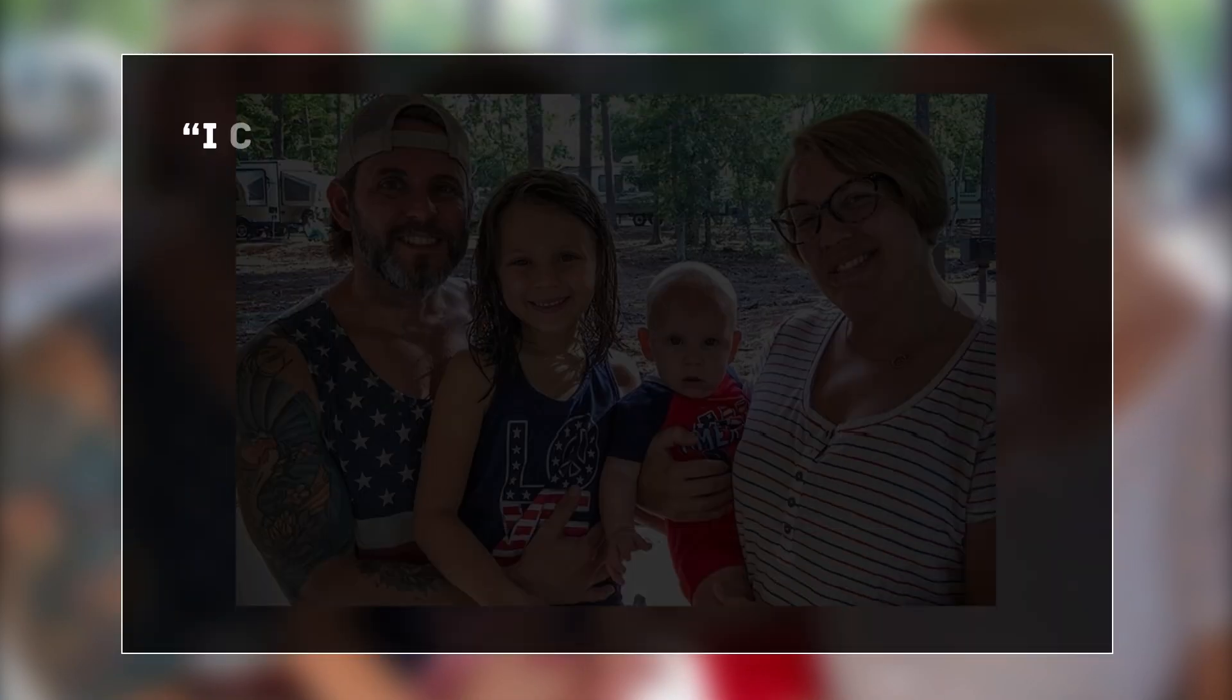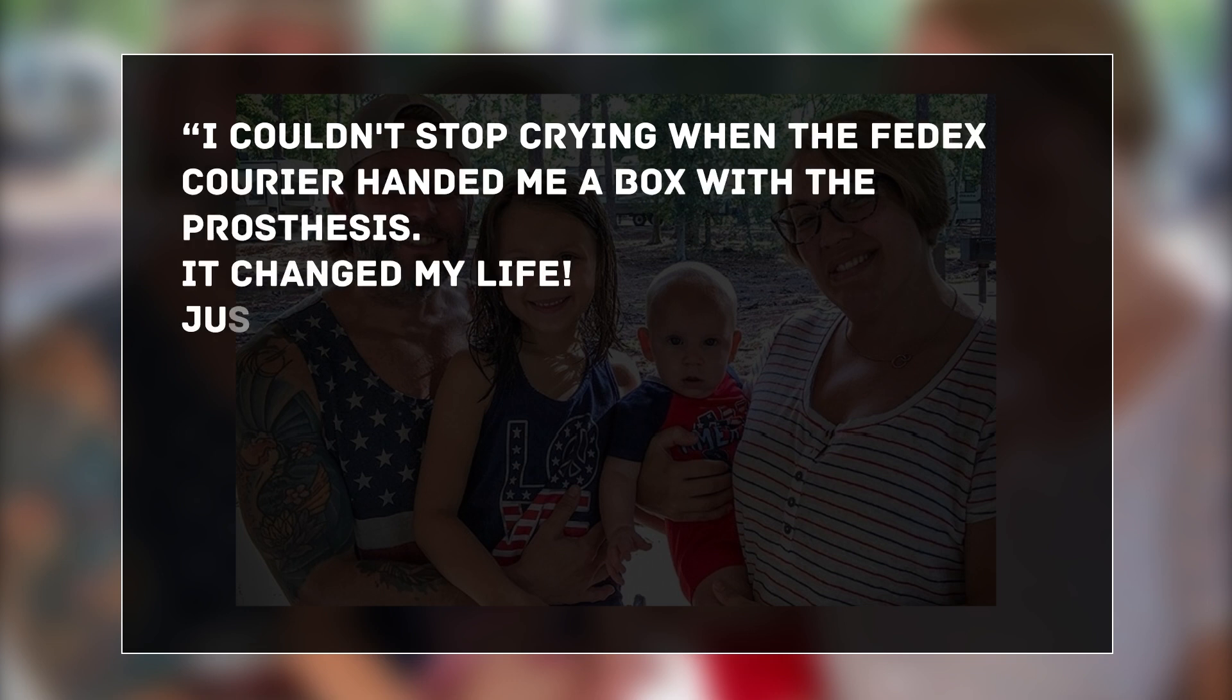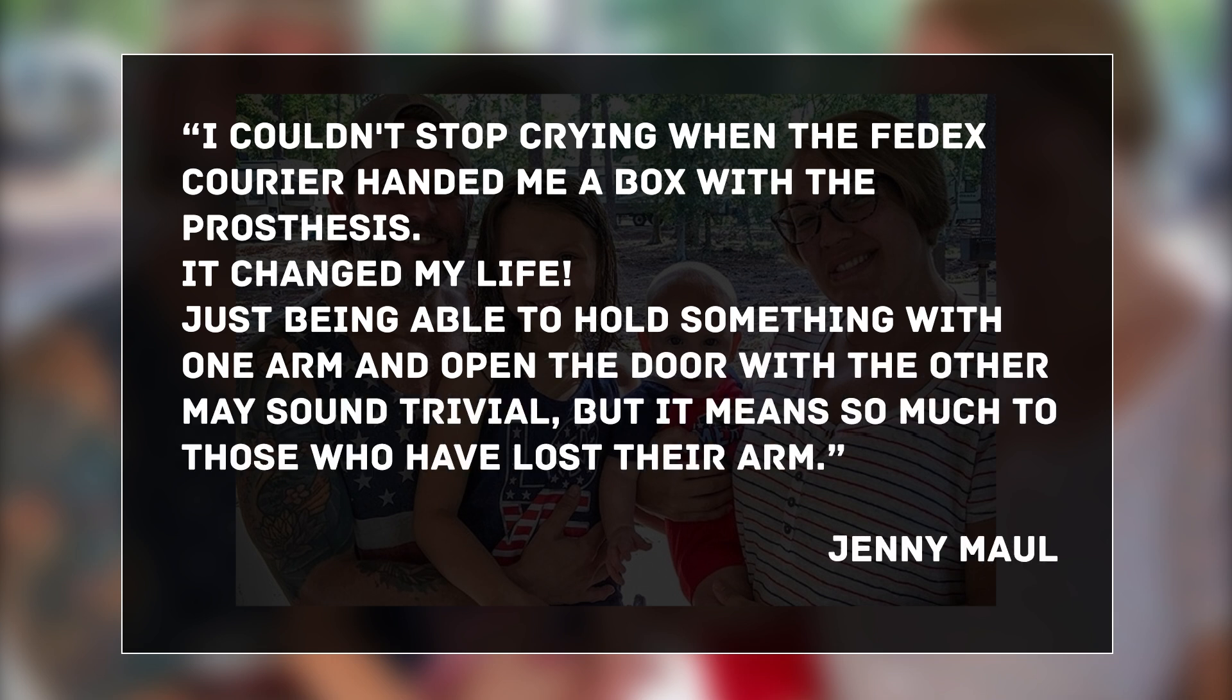I couldn't stop crying when the FedEx courier handed me a box with the prosthesis. It changed my life. Just being able to hold something with one arm and open the door with the other may sound trivial, but it means so much to those who have lost their arm.